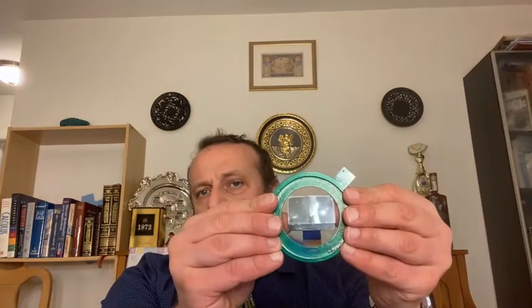Good afternoon. For demonstration purposes, we have developed a proof of concept, a prototype device of an AR/VR smart contact lens that implements and showcases the advanced, most critical patent pending technology that underlies our very unique and revolutionary product. It consists primarily of two parts. One is the contact lens, scaled up approximately 1 to 7. It contains a number of electro-optical components.